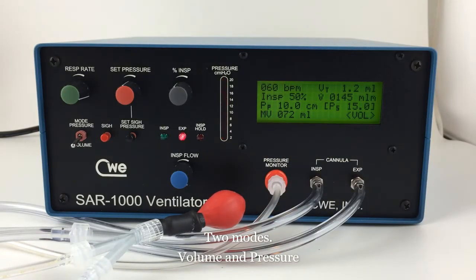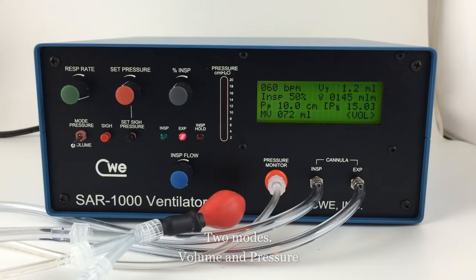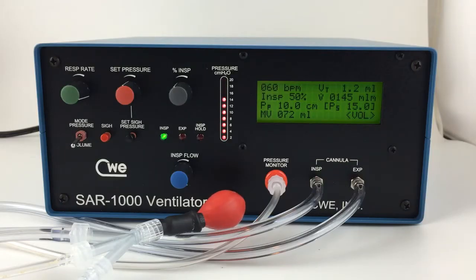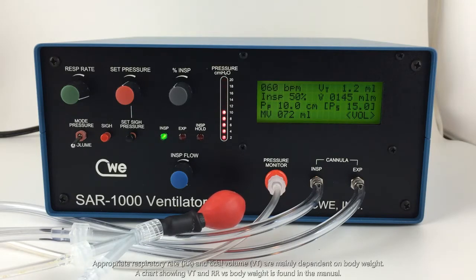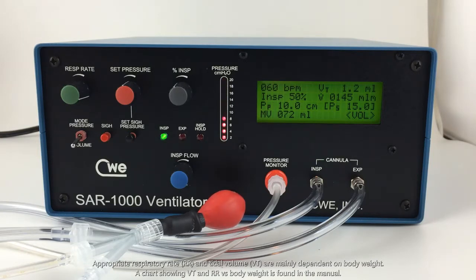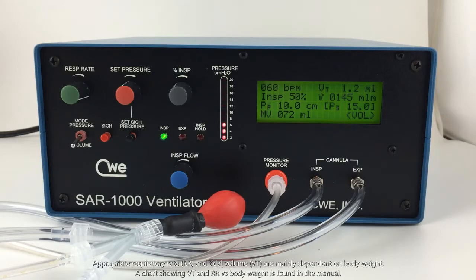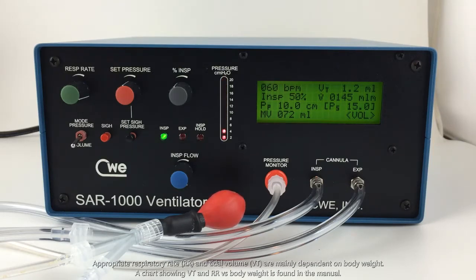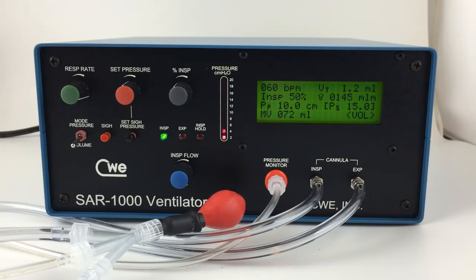The SAR-1000 has two modes of operation: pressure mode and volume mode. We'll begin with volume mode. A few important settings need to be determined when using volume mode. The approximate respiration rate and tidal volume are mainly dependent on body weight. A chart containing tidal volume and respiration rate versus body weight is found in the manual.